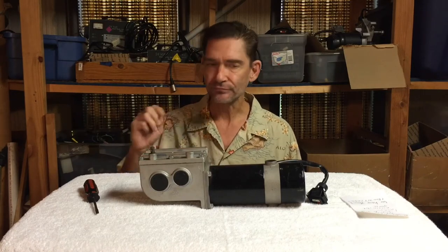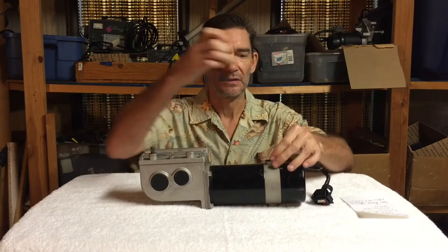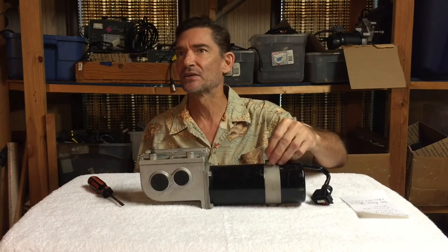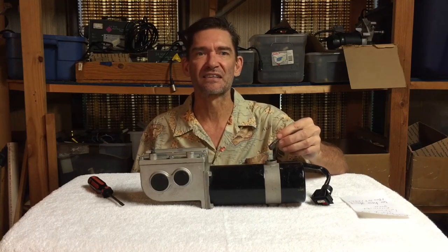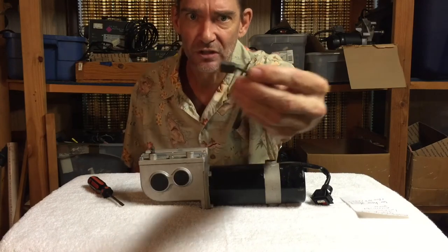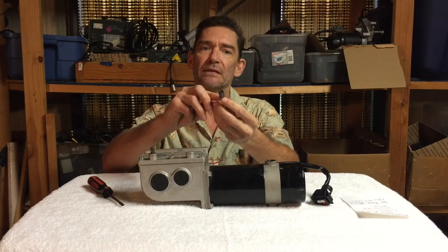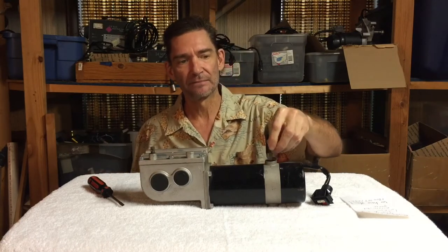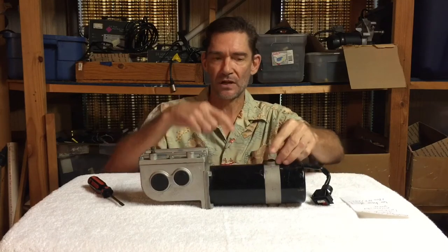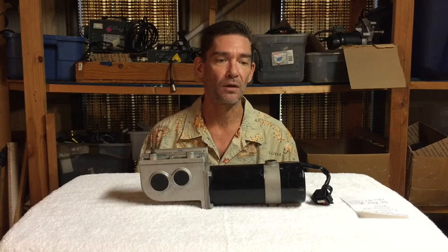To check your brushes — brushes are located here. This is a two-pole motor, meaning it's got two brushes. If you're getting bad performance, it's sluggish, you smell something, or it sounds weird like a grinding, that's bad. This is what a brush should look like. With a lot of use over time, these brushes wear down. At the bottom there's a mount to the spring, and when you get down there it's metal on metal — the brush is softer than the metal on your commutator. If it's metal on metal, you're going to have problems.